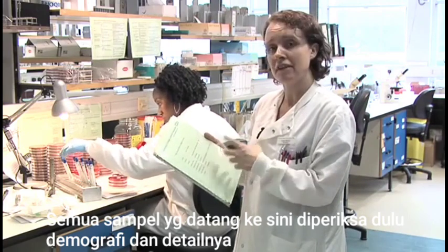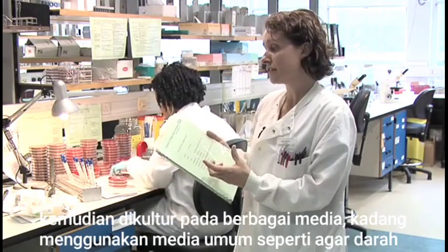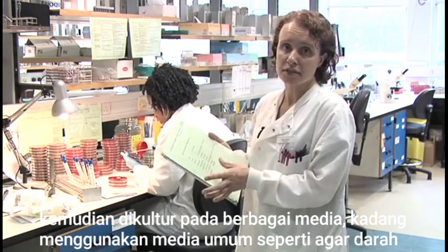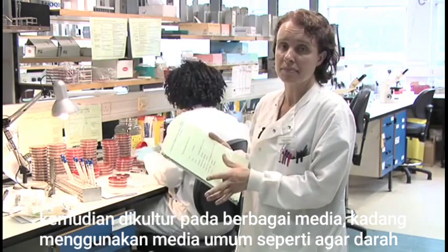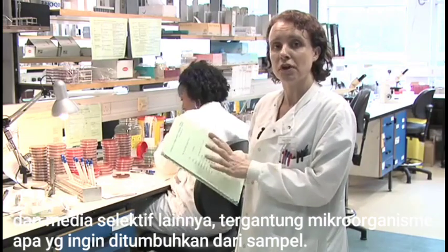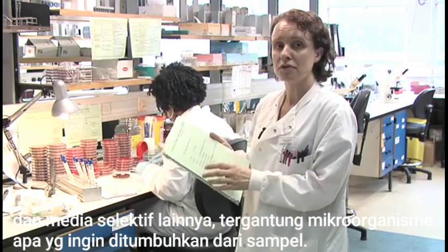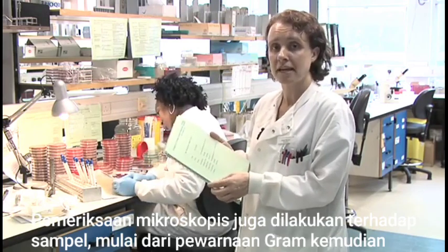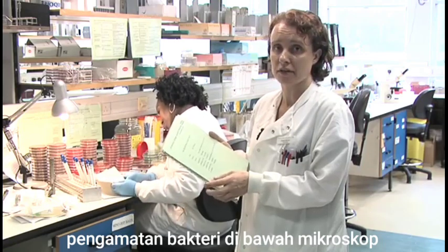We would check the demographics and the details of the sample, and then culture the sample onto various media using sometimes basic nutrient media such as blood agar and other selective media dependent on what we want to grow from that particular sample. We also do microscopy on those samples, on specific samples. We would do gram stains and look for the bacteria under the microscope.